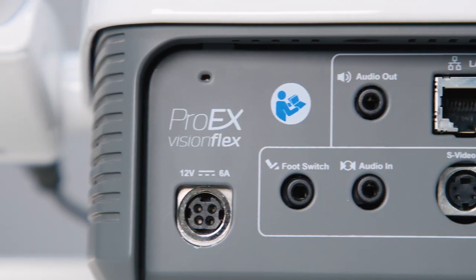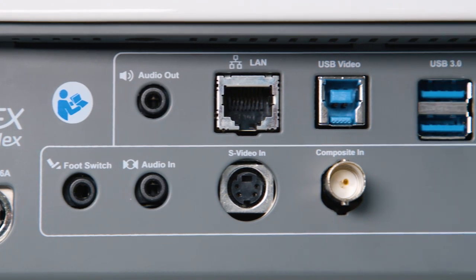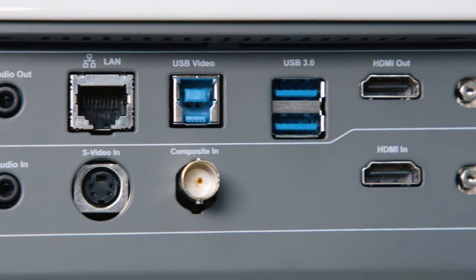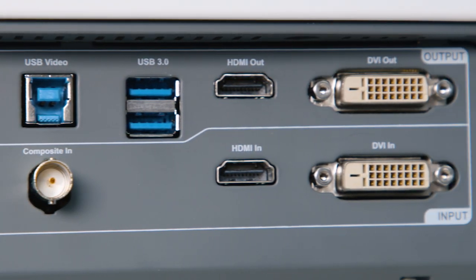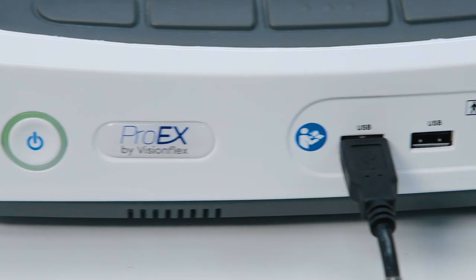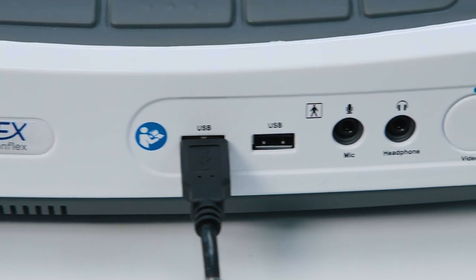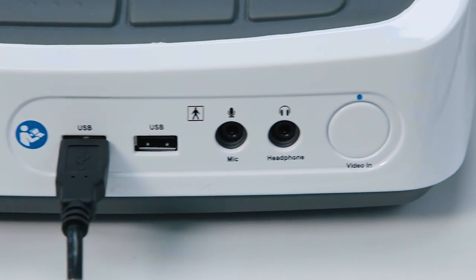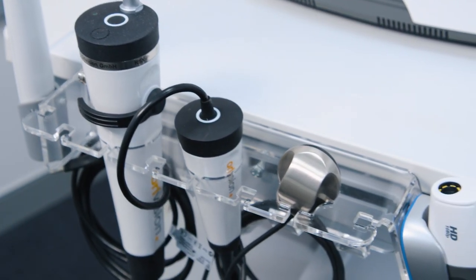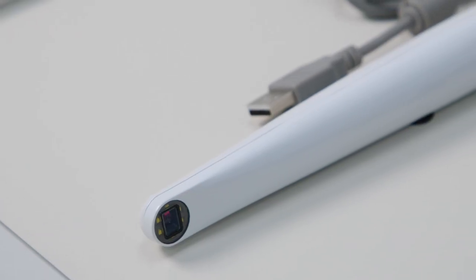The output of the ProEx can go to any monitor or viewing system through the DVI or HDMI interface, or to a PC via the USB-B output. Inputs into the ProEx are used to connect third-party equipment such as ophthalmic cameras and existing endoscope equipment which the customer may have on site.